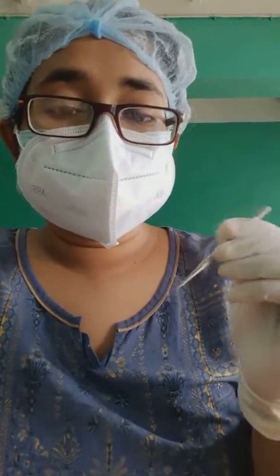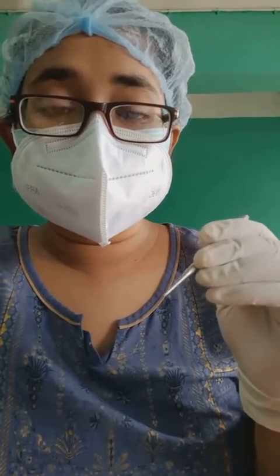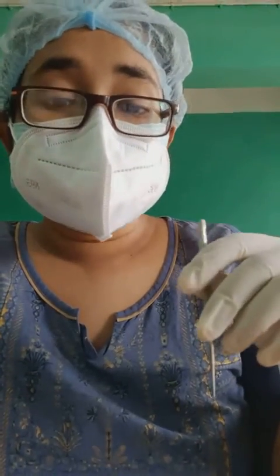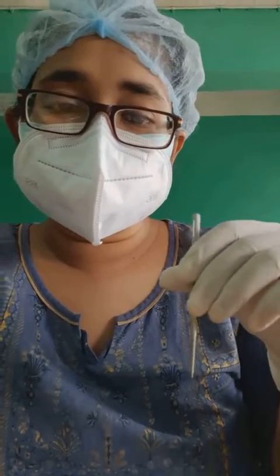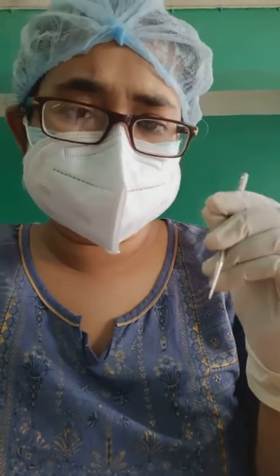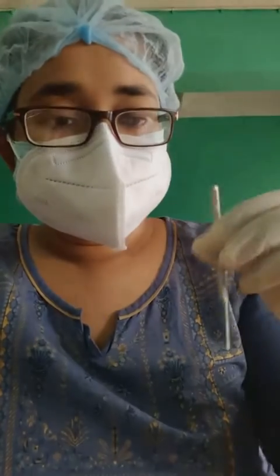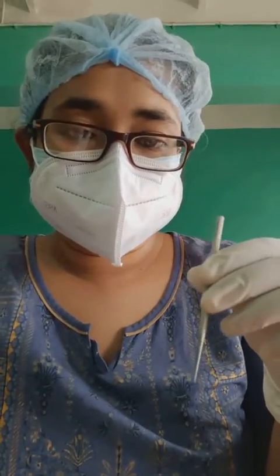We need to dilate the punctum first before doing the syringing. As the name suggests, we instill this instrument into the punctum of the respective canaliculus we are going to test, and dilate it. There is a small hole present at the end of the canaliculi, and we dilate that with this punctum dilator.